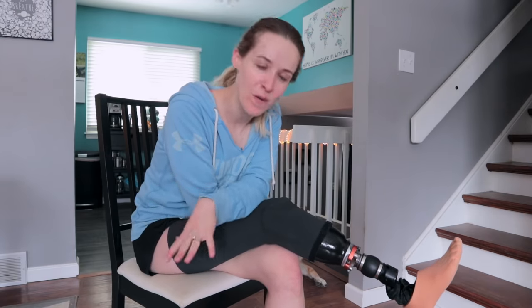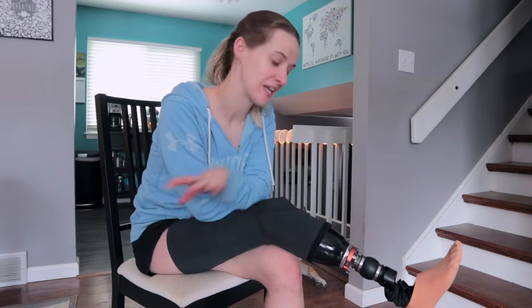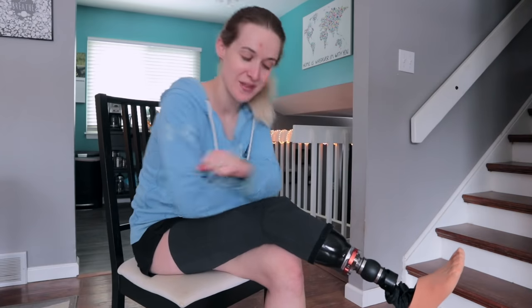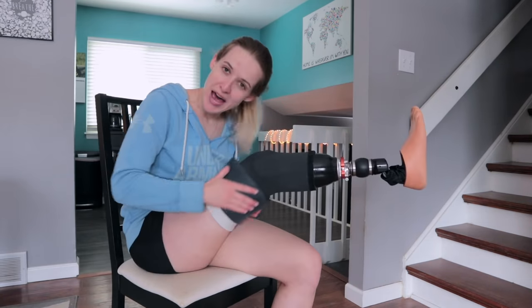I want to keep cleaning my house — having three dogs, two cats, and four rats makes for fun weekends of cleaning. You may not know this, but there are actually quite a few ways that prosthetics attach to human beings. One way is called passive suction, which is what I currently have. This one is based on suction, so forming a good seal is really, really important.